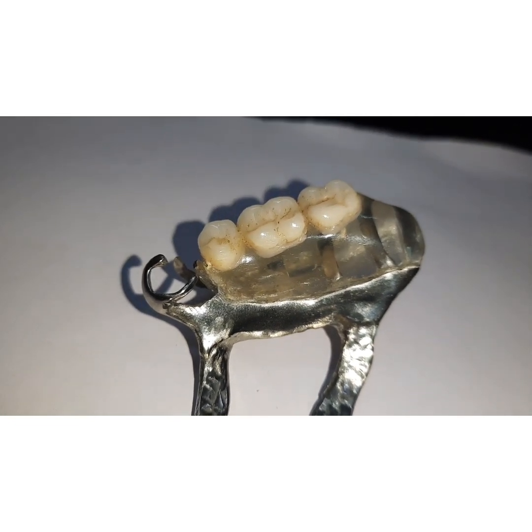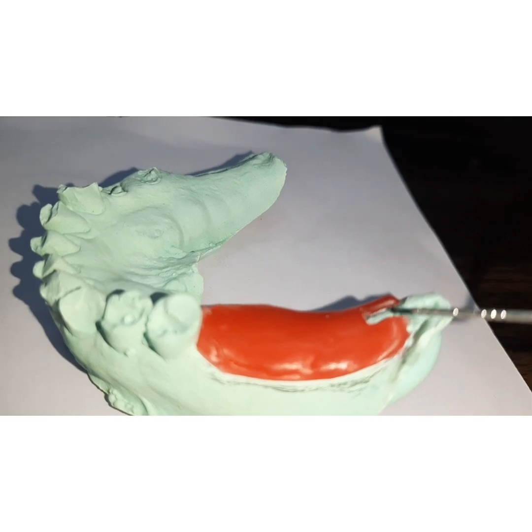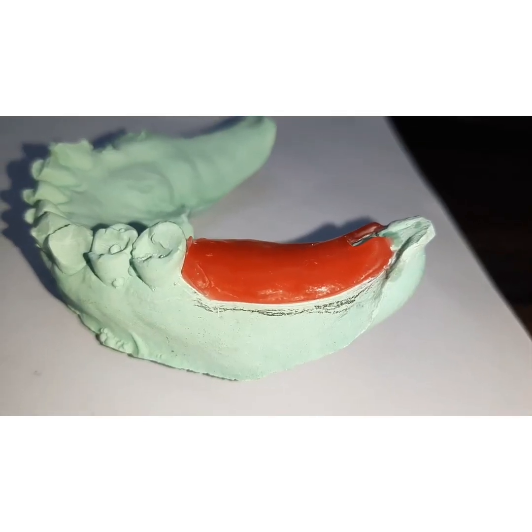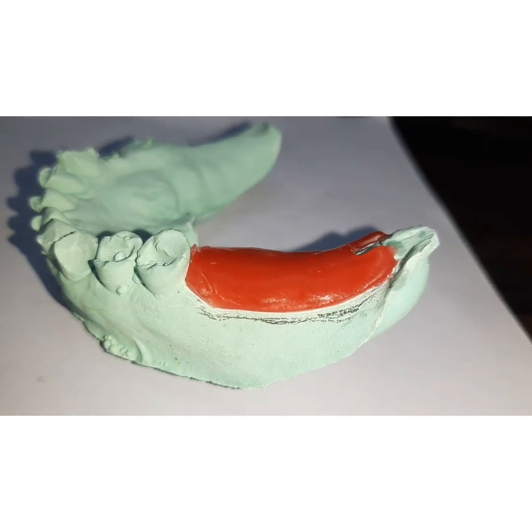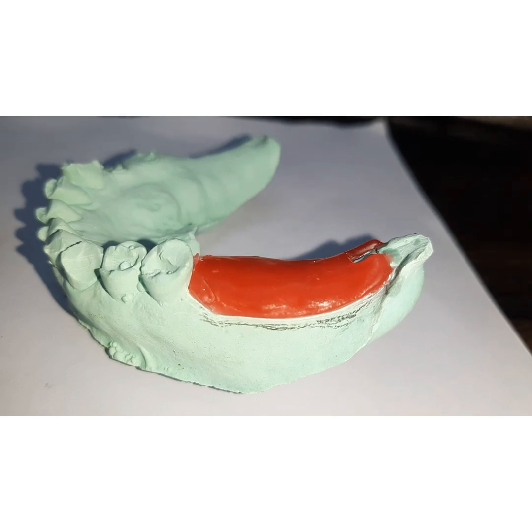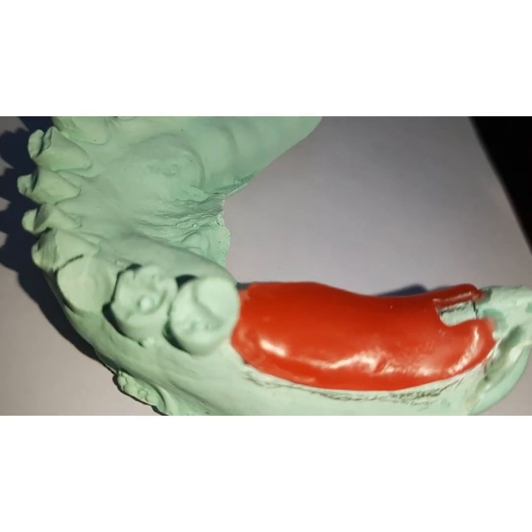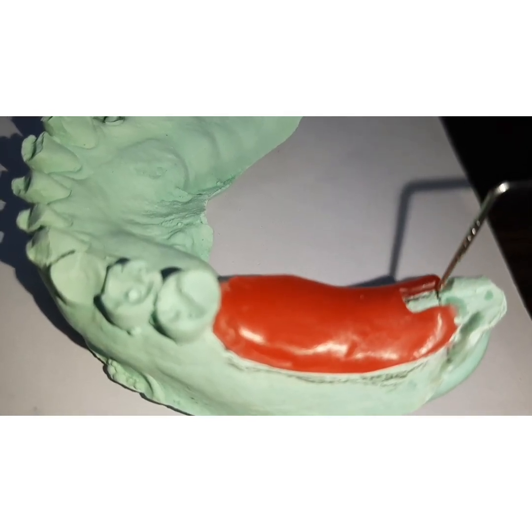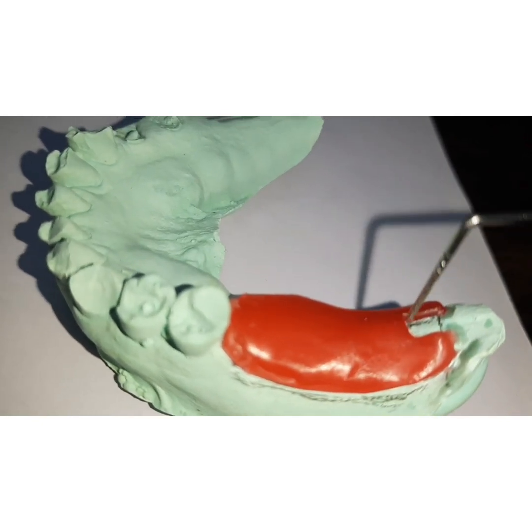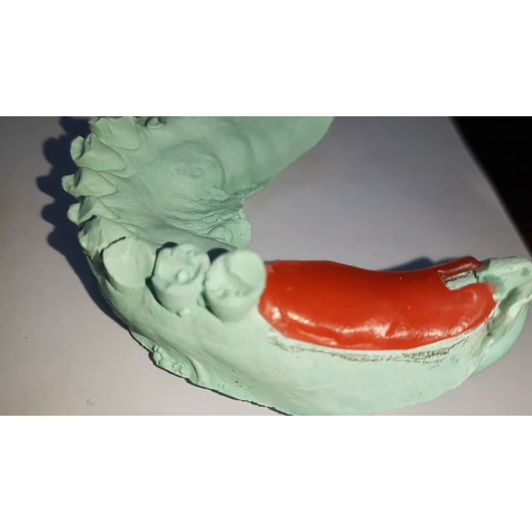An internal finish line is given when you have a master cast and a relief wax of 24 to 26 gauge thickness, and this is done before duplicating the cast. On the duplicated cast, you will be making the wax pattern, and once you cast it, you can see there is space for the acrylic resin. I have also removed the wax and provided what is known as a tissue stop, so the metal flows directly in that area during casting — this provides stabilization. The function of relief wax is basically to provide space for the acrylic resin base to lock against the retention struts seen in the lattice type or mesh type design.